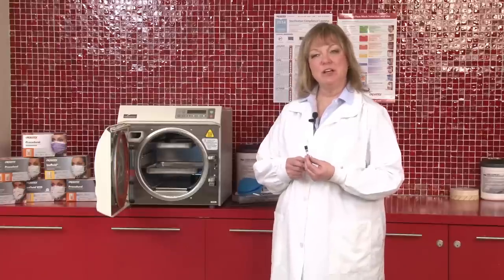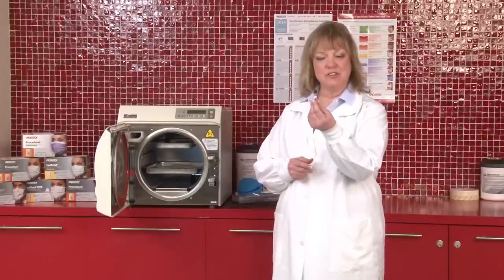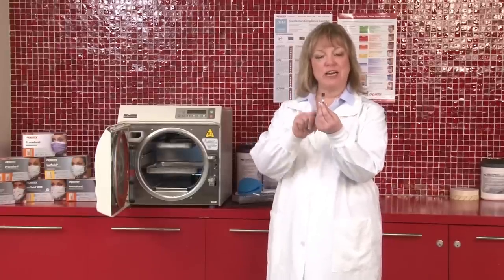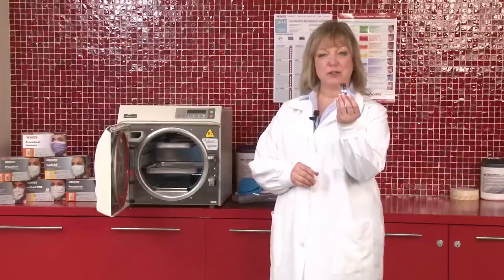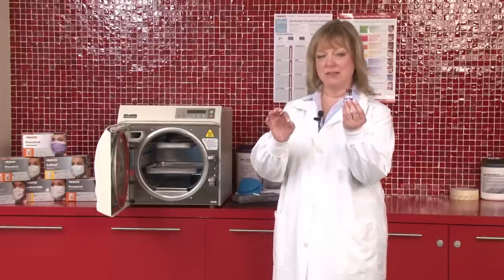After you've waited the 10 minutes, you'll take the test out of the steam sterilizer, and the first thing that you're going to look at, did that blue chemical indicator strip turn black?